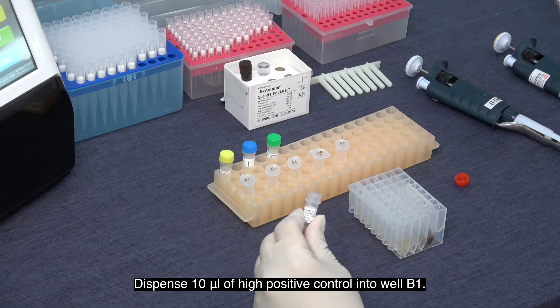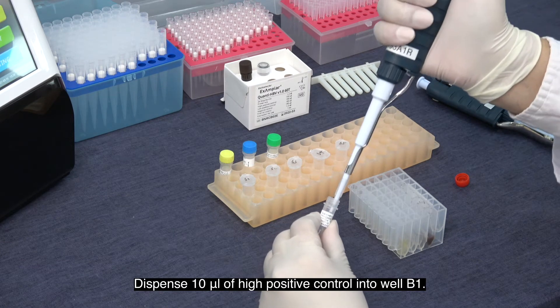Dispense 10 microliters of high positive control into well B1.